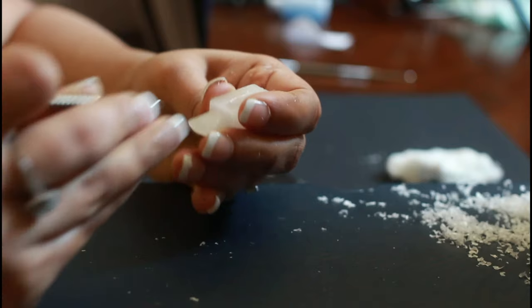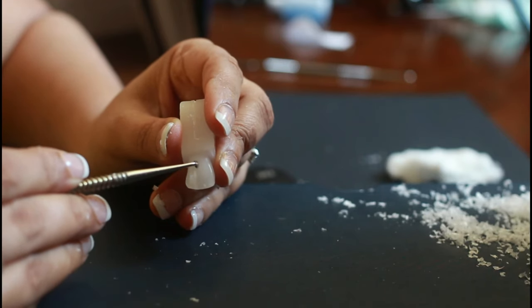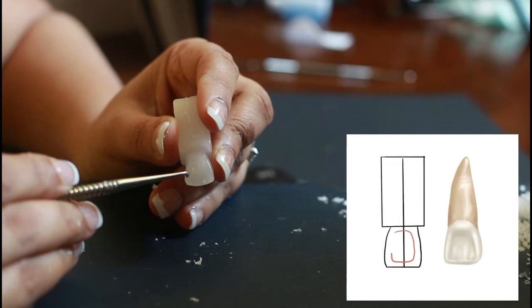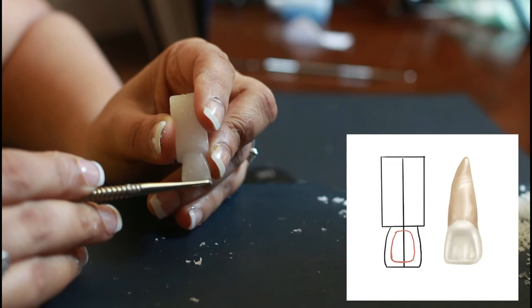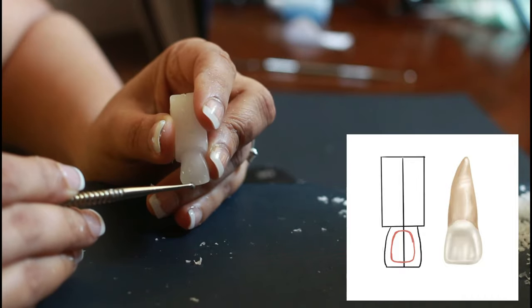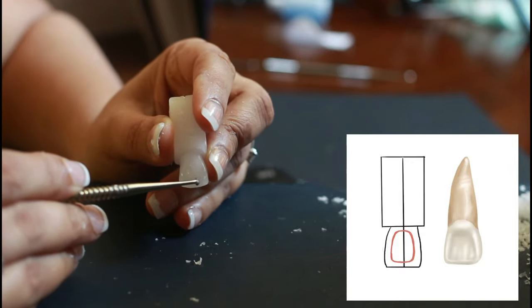Carving out the fossa — the fossa is in the shape of a trapezoid. At this time, imagine and mark a smaller trapezoid within this trapezoid, leaving 1 mm of marginal ridges at both sides. Then carve the wax from the center.